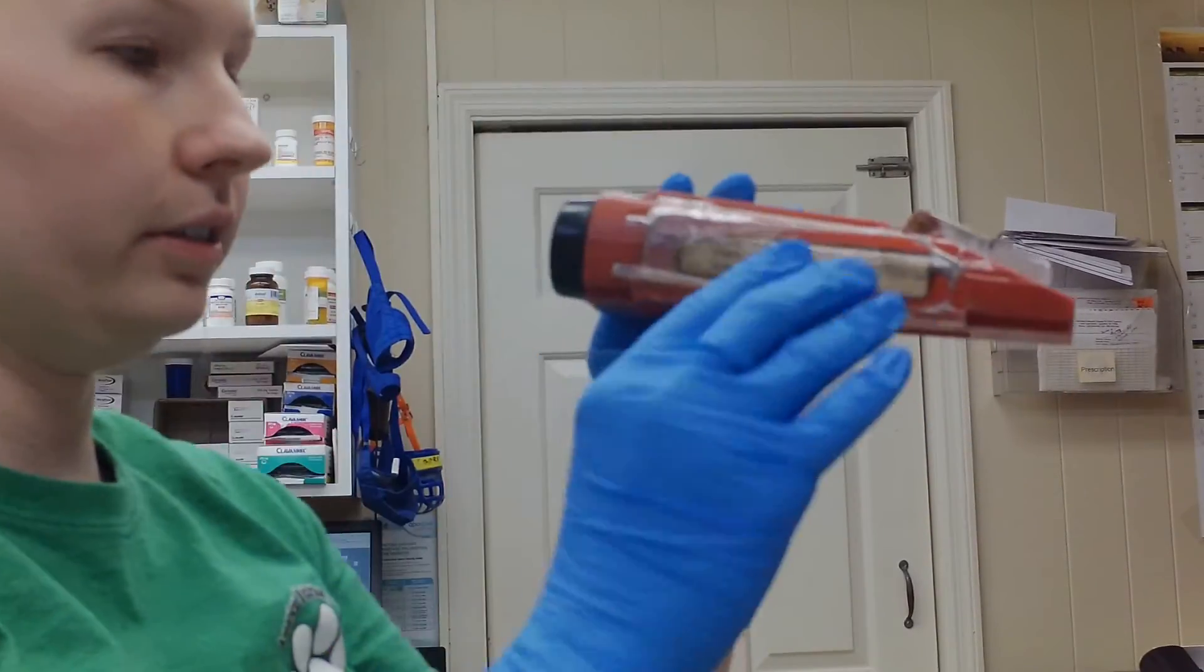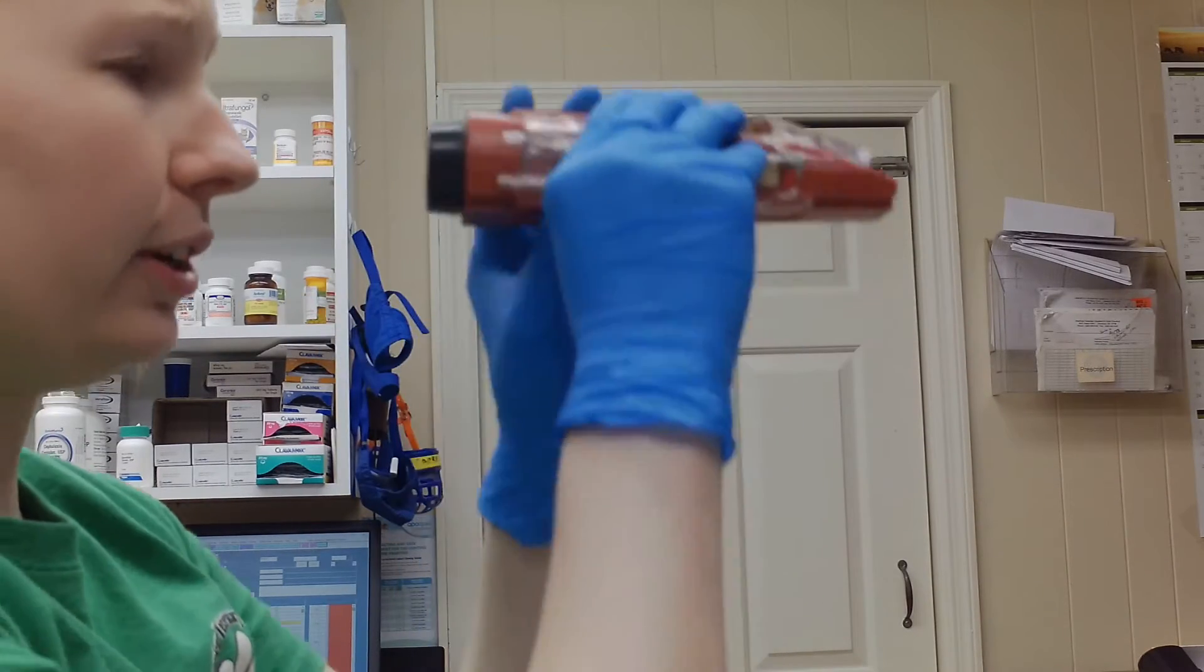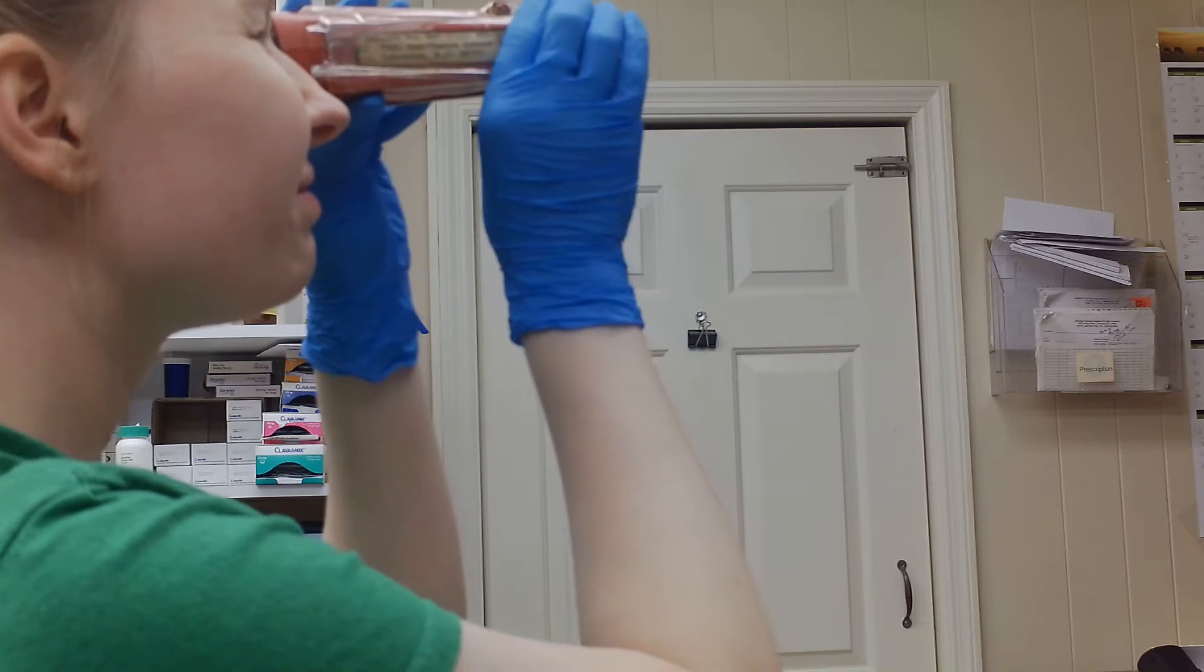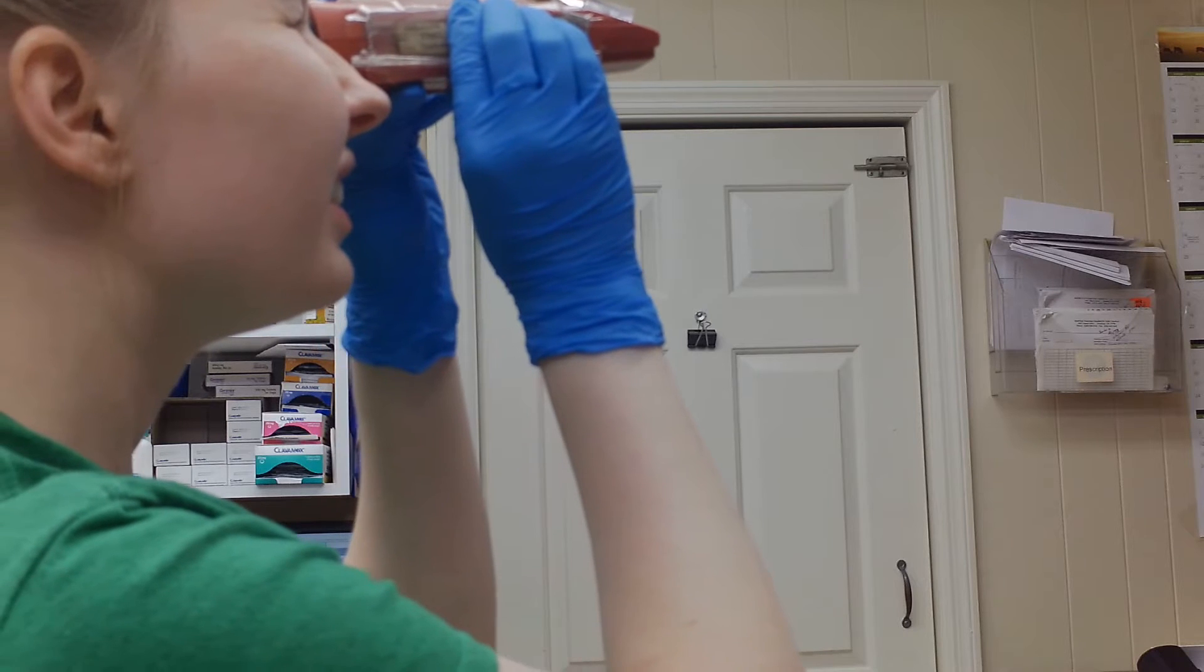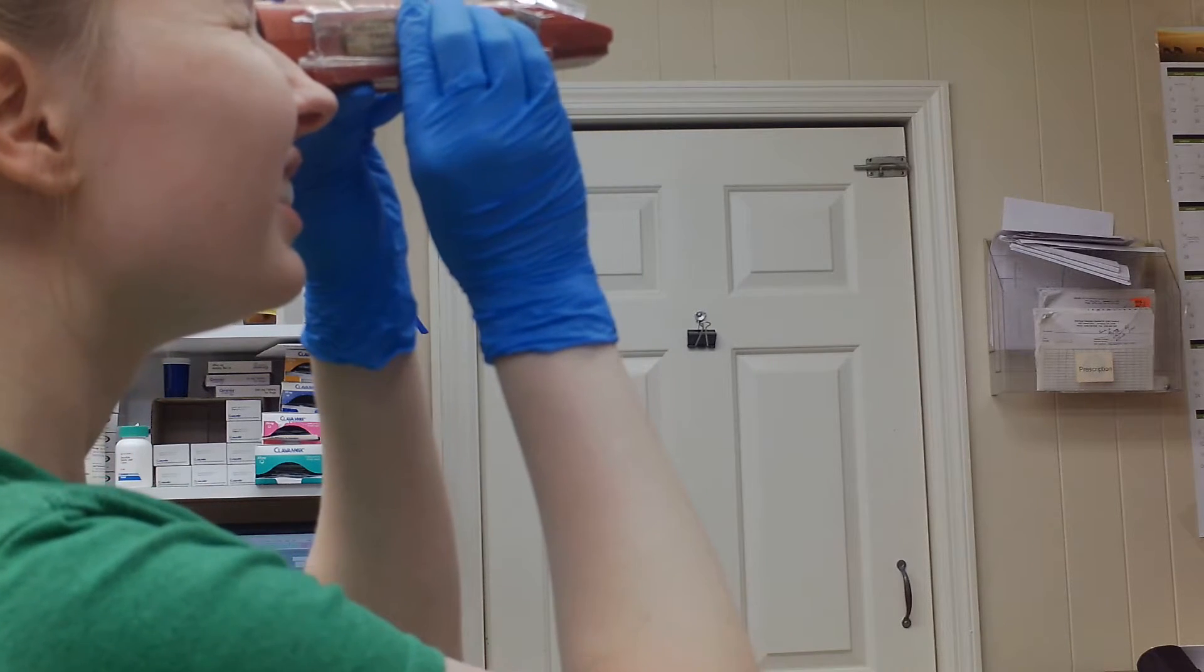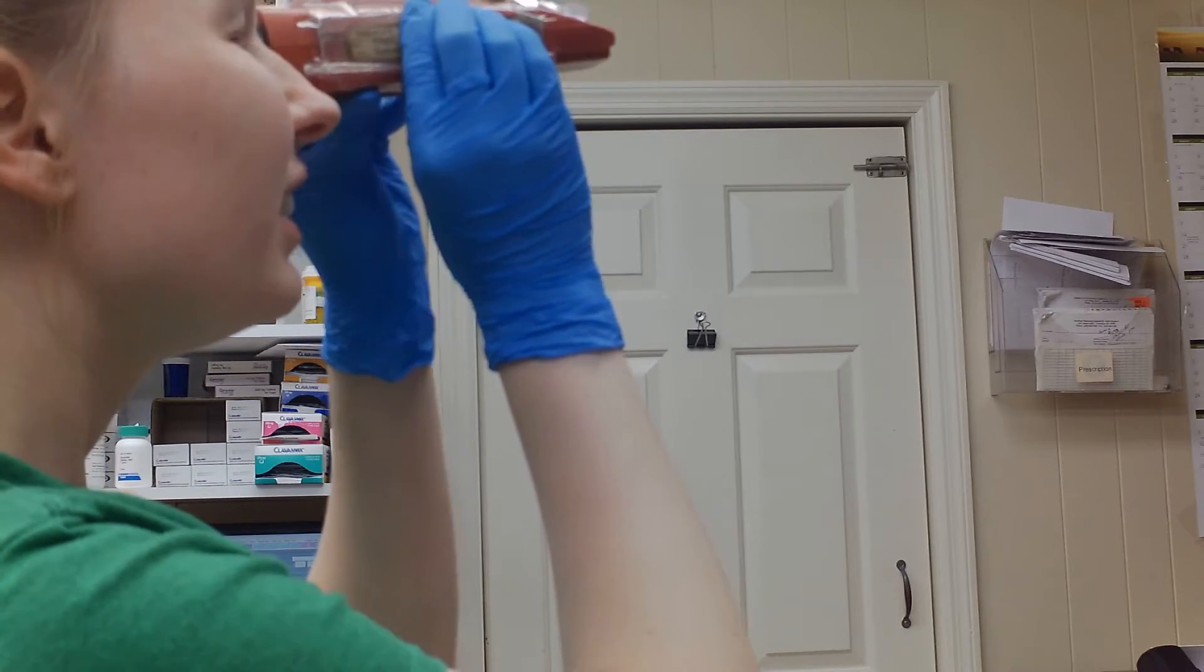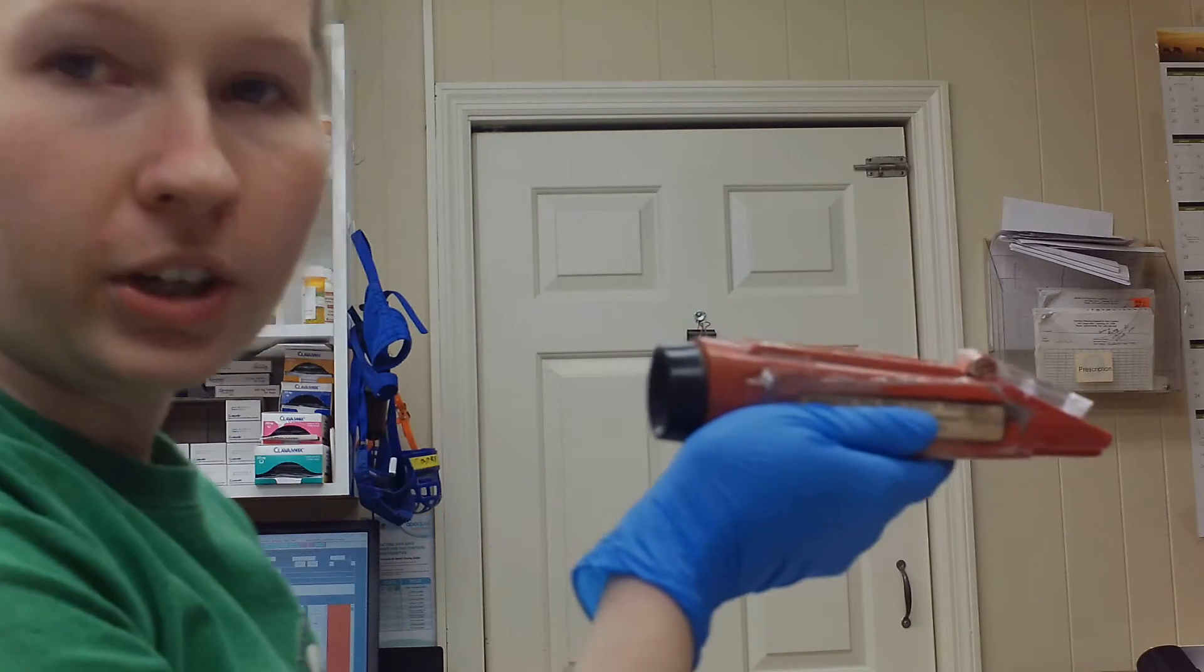You're going to take the refractometer and just place it through the light and look at it. For total solids, I'm reading about 11.